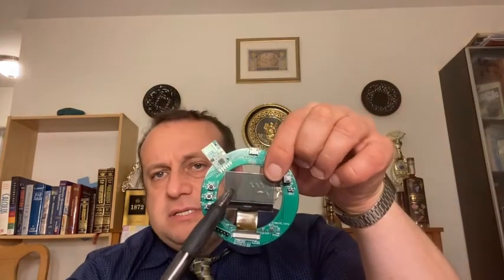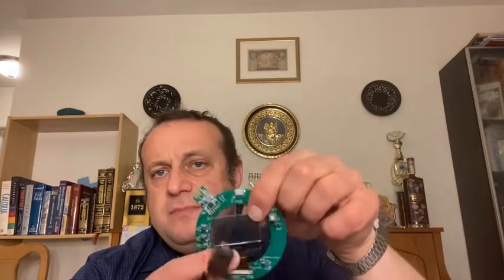It has a concave shaped optical shield optical component. It has an embedded see-through semi-transparent display here. It also contains a display controller and power supply module. At the moment, the device is fed by a pack of 4 batteries. And it also has a communication component through which the contact lens model receives and sends commands and information.